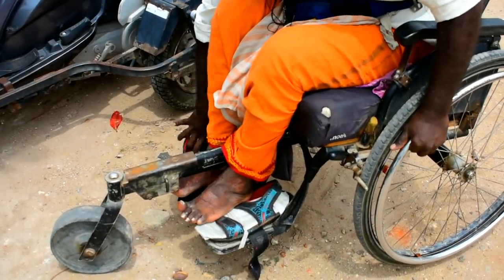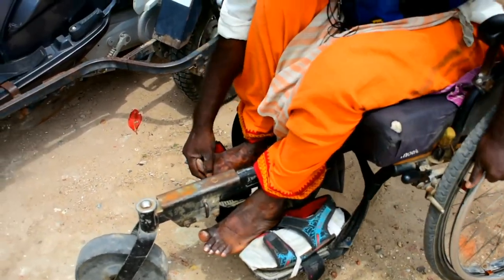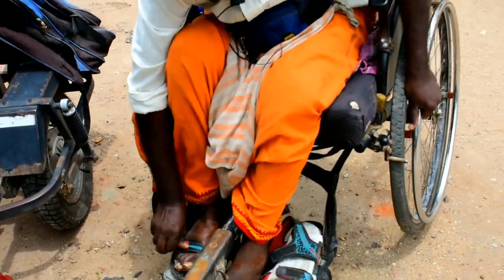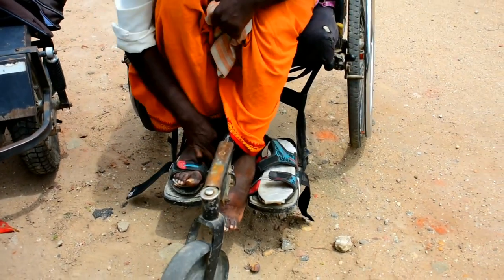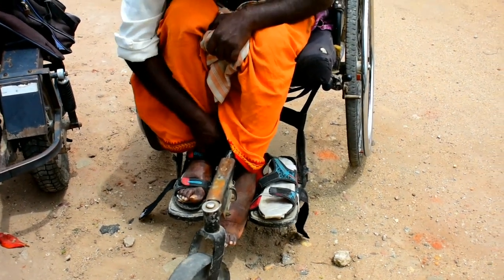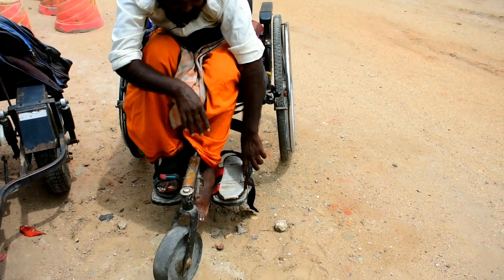Because of this unpredictable spasticity, the limb can move anywhere and he can get injured. That's why he uses this approach — he fixes the sandal to the wheelchair and the scooter so that he can put up the strap. It can avoid self-injuries; you can prevent injury by using this kind of modification.